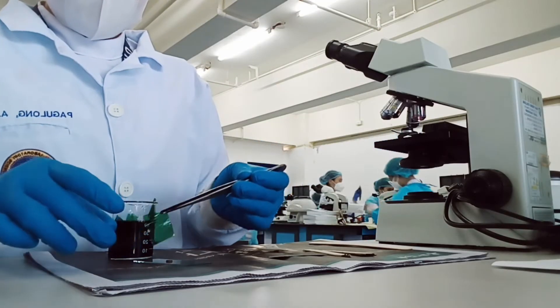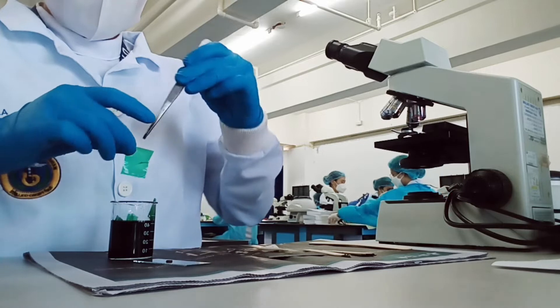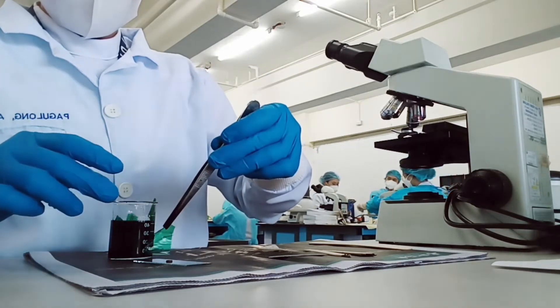Place one piece of the cellophane, which has been soaked in Malachite green solution, over the fecal sample.